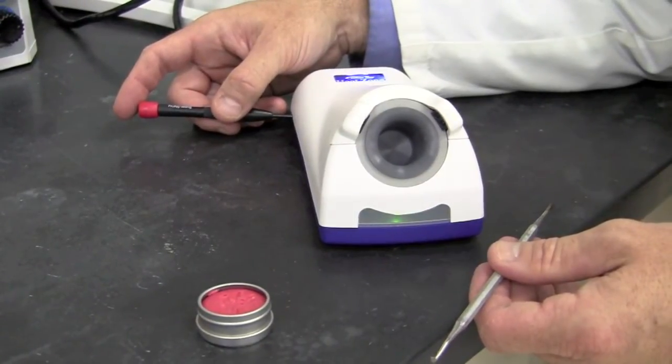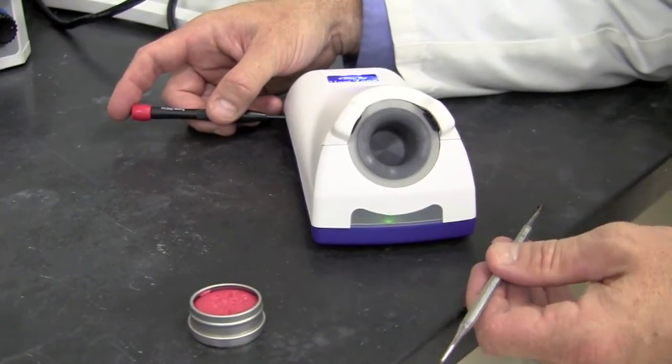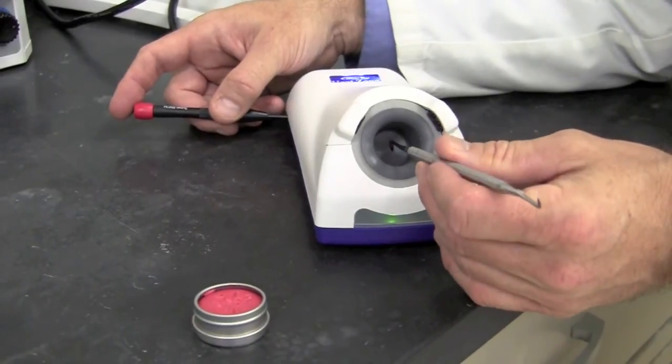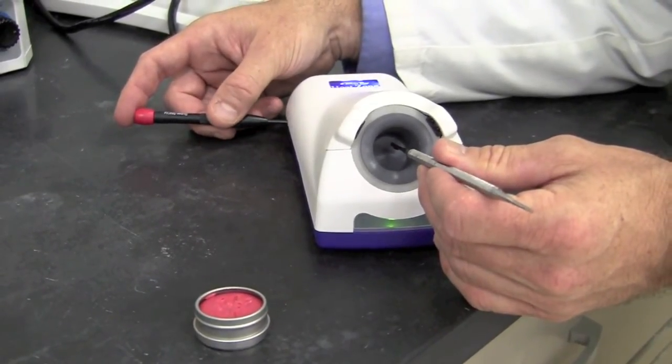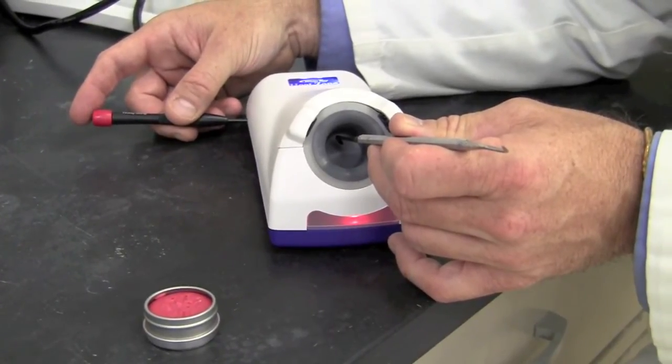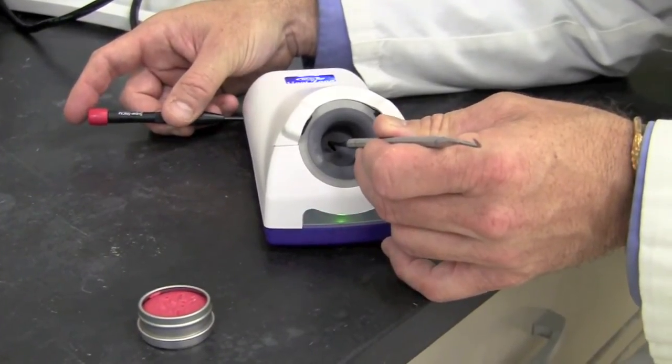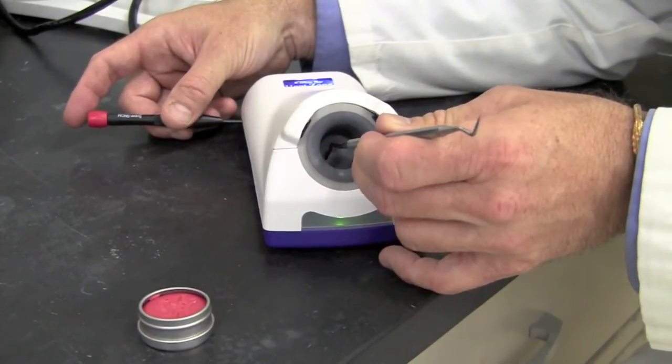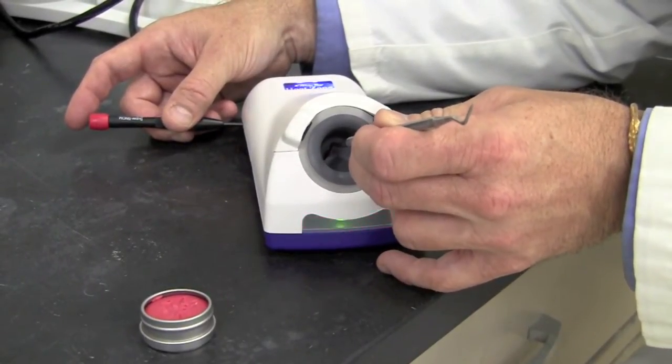Now that we have a solid green light, it's time to insert our tool that contains iron to adjust the sensitivity for that particular instrument. Adjust the Phillips head screwdriver to the left to make the unit more sensitive. We should see a flickering red green light. That indicates that the tool is heating properly.